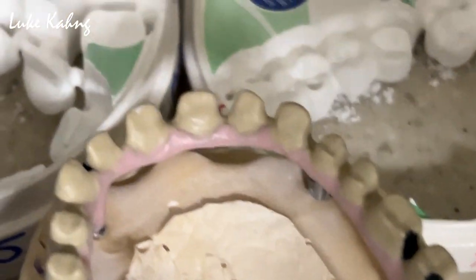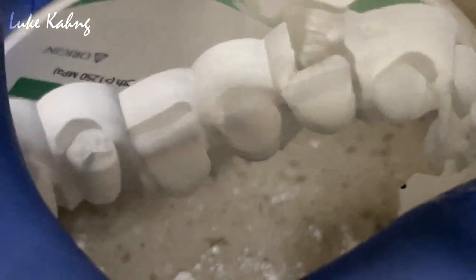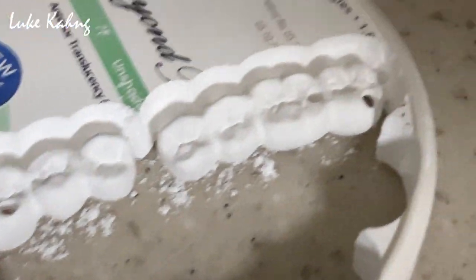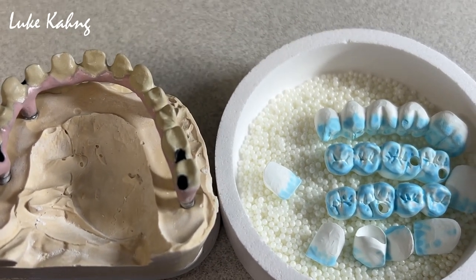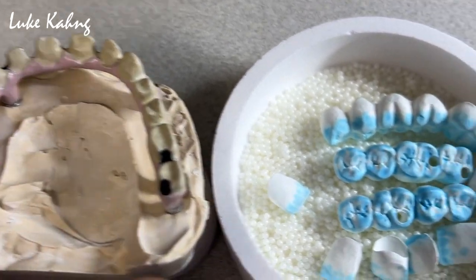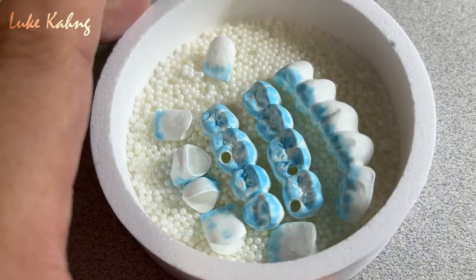After we design and nesting, you saw all the individual crowns and tiers — now it's finished. The mills are perfectly done and now we're going to the nesting. Cut it and then coloring — here's a four-unit bridge for the side. By side, this four-unit and the other side here's a four-unit as well. So this one we can grind and then we're going to color soon.